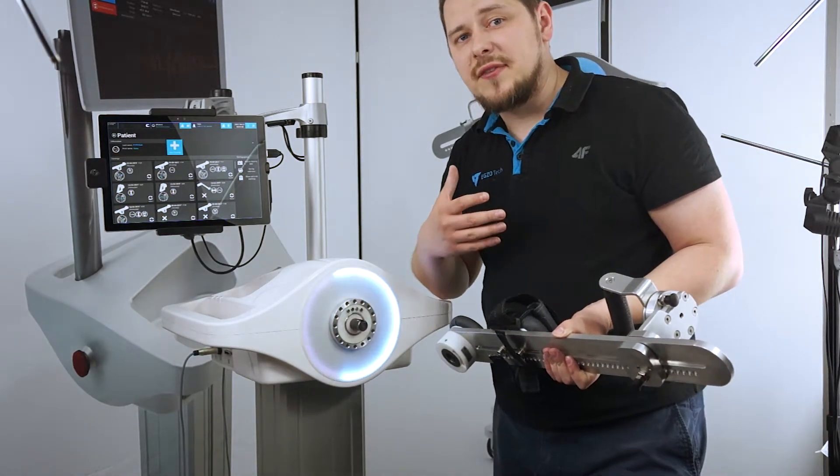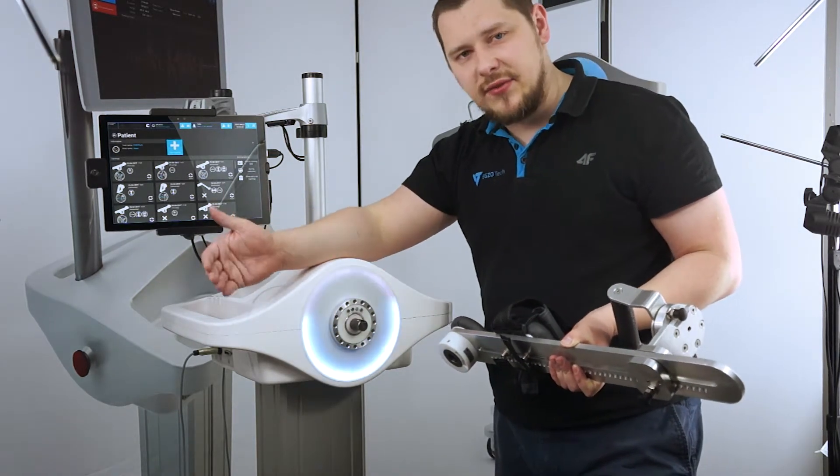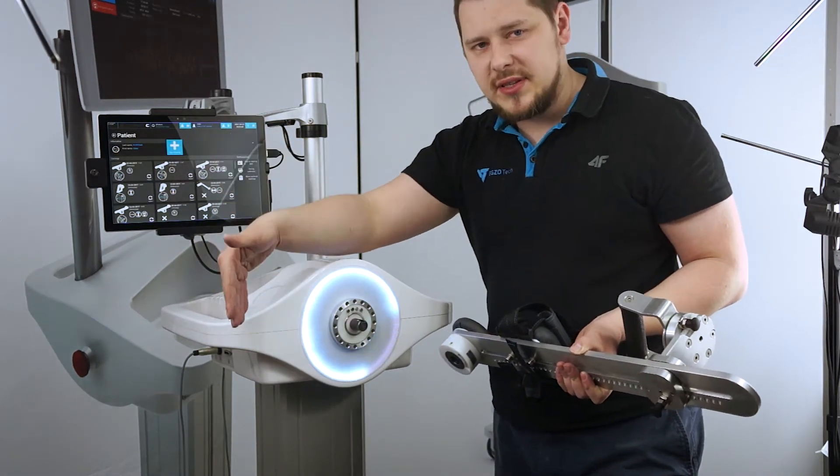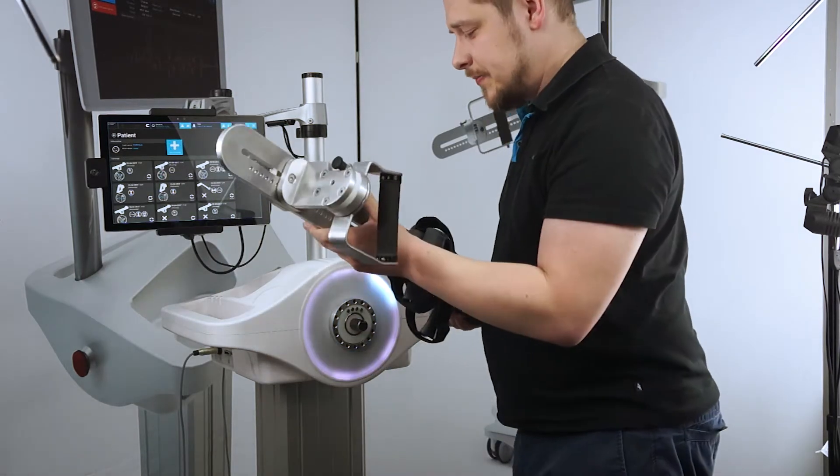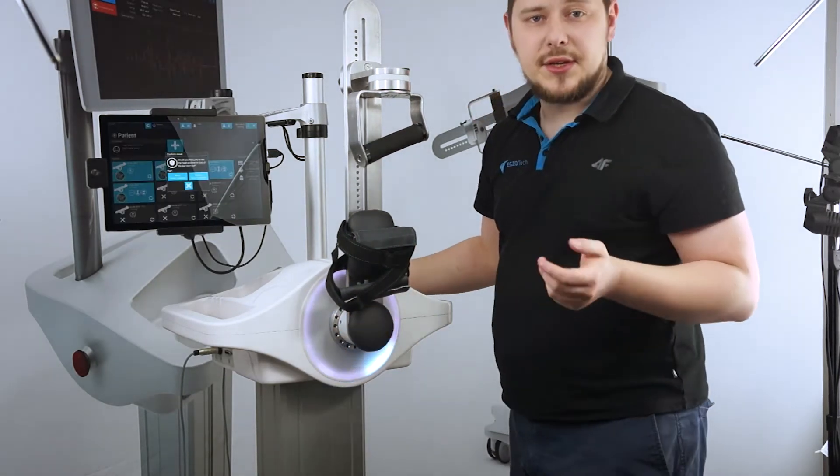That doesn't mean that you have to apply more force to pull it out. It just means that you have to compensate for the force of gravity that's going downwards with another hand. And when it's done, you can still connect this, put that in, and you're good to go.